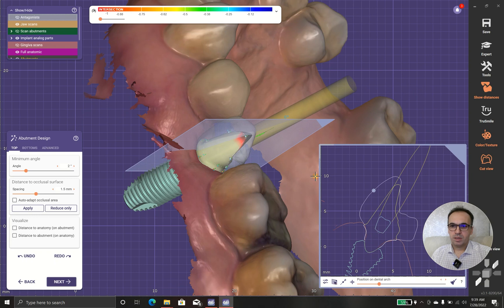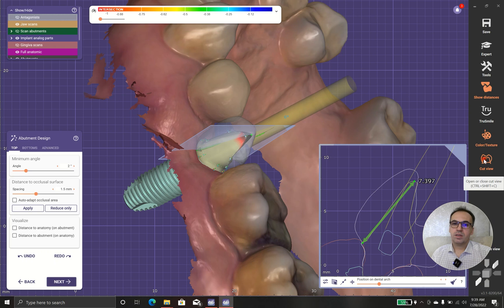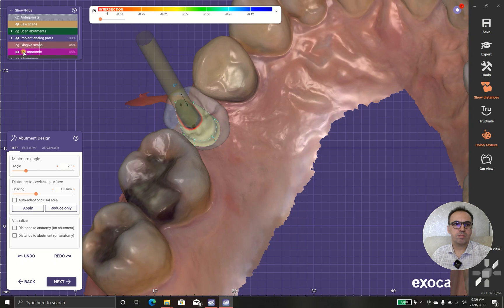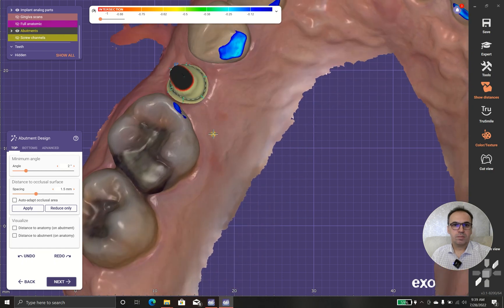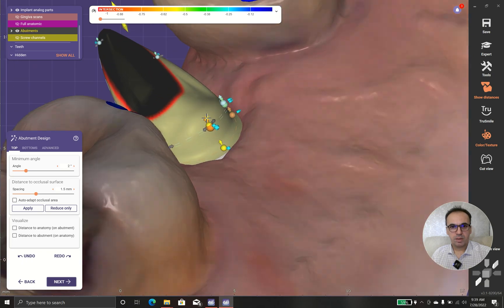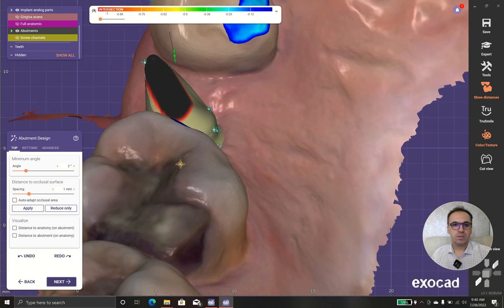We should check the amount of cemented parts. In this case we have seven millimeters, and I'm pretty sure there is no problem with the cement. I rather prefer to have this piece here, and in case I reduce this to one millimeter, I will get better results.